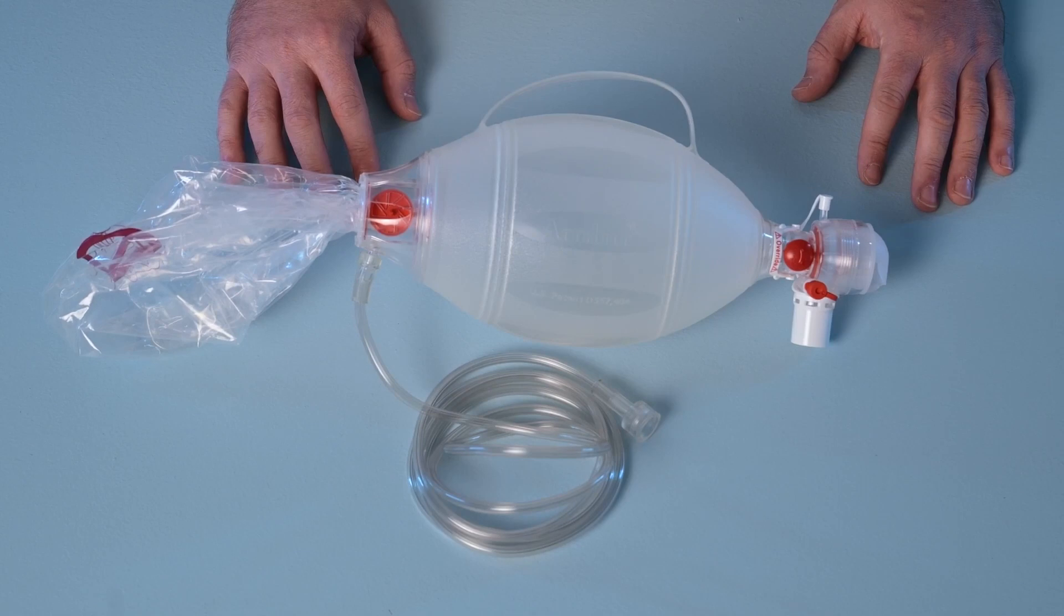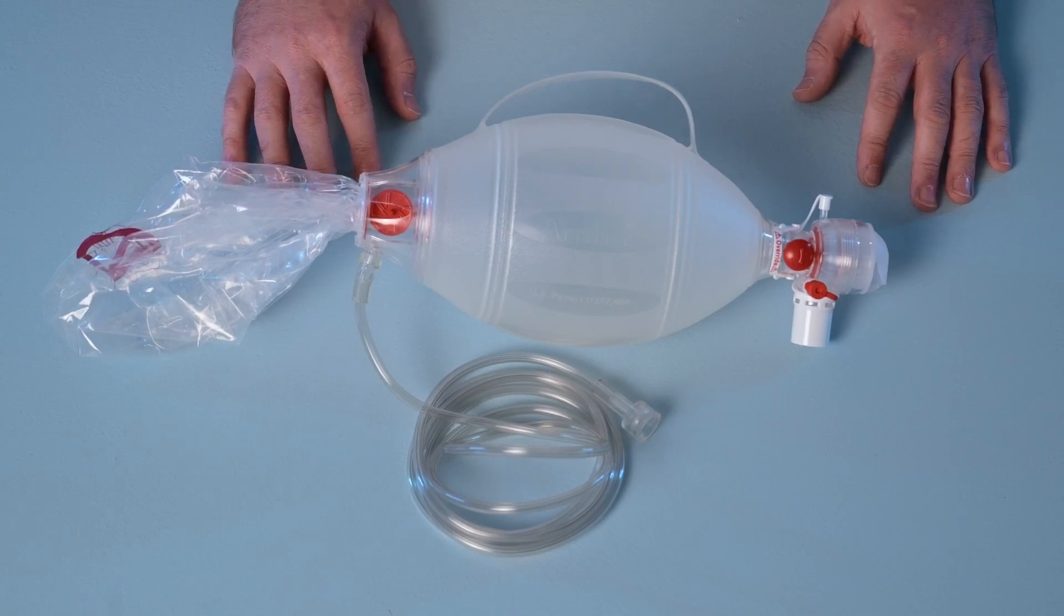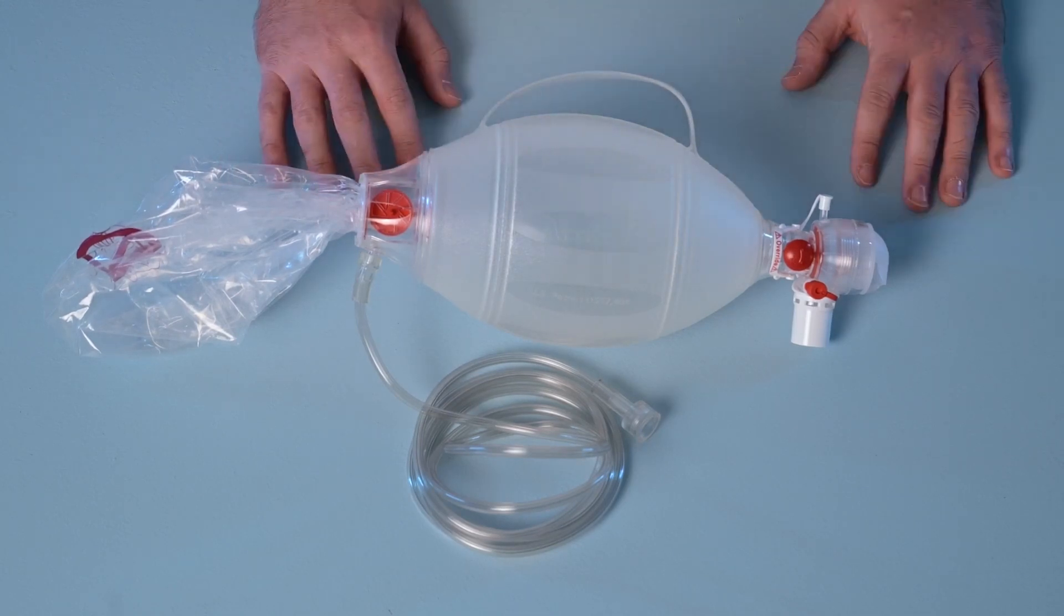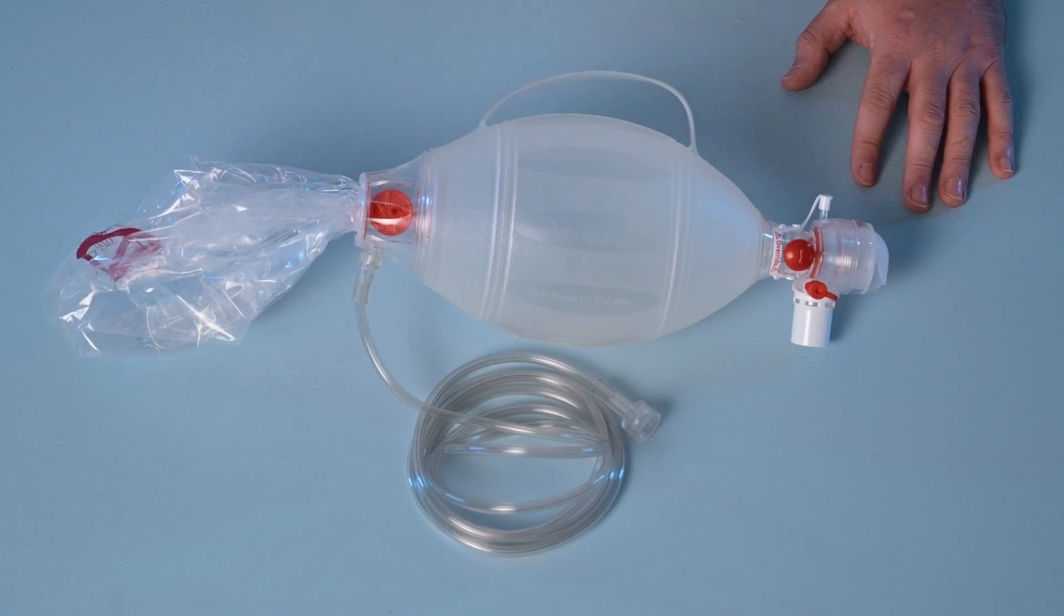Some adult and pediatric Spur2 products are also supplied in a compressed state for convenient storage, and these products must always be unfolded prior to use.